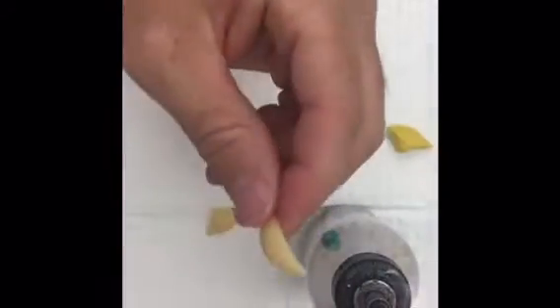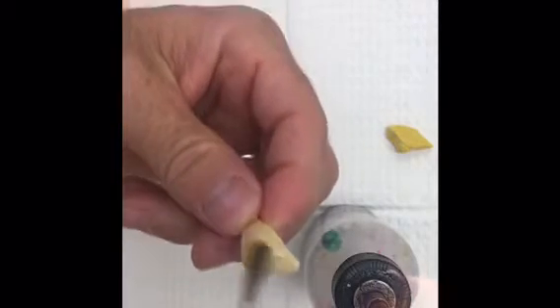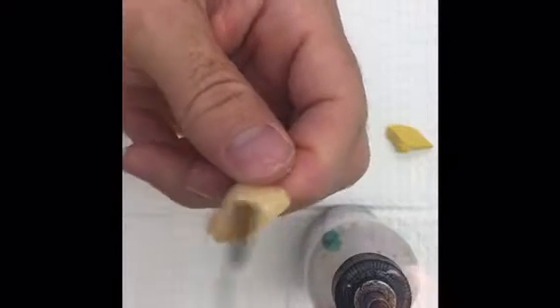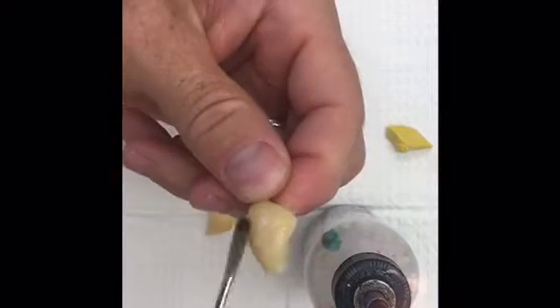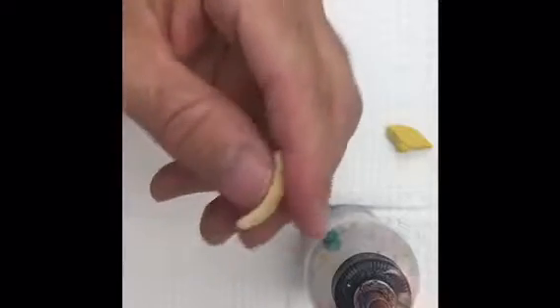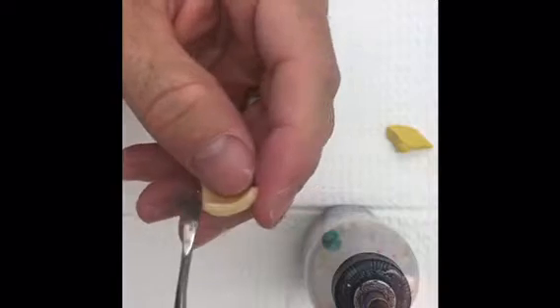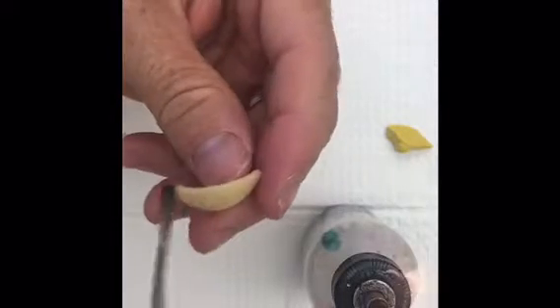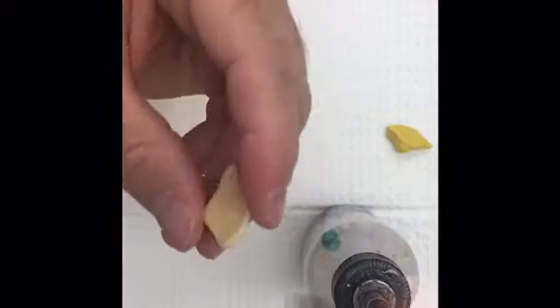If I'm going to smooth the front surface, I want to be able to put it in and have them blink over it without it being too rough. I'll take the back of the tool and make sure all my surfaces are even and smooth. I try to move nice and fast over the surface. Most likely you'll be removing material rather than adding material in this case.